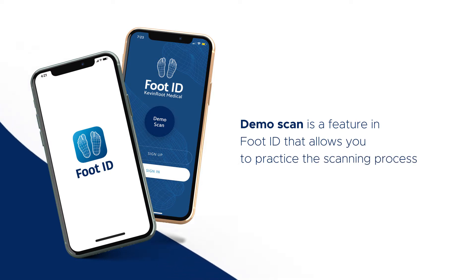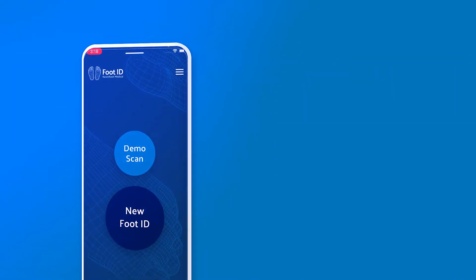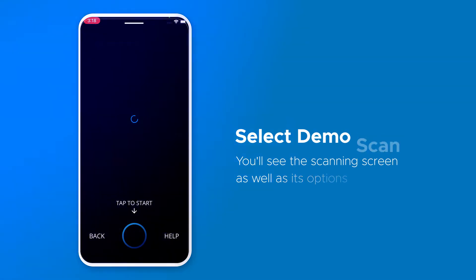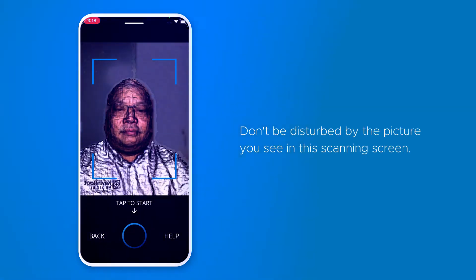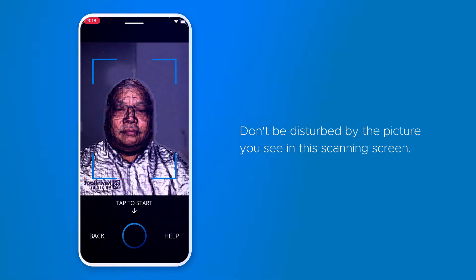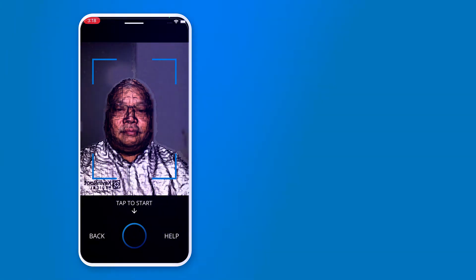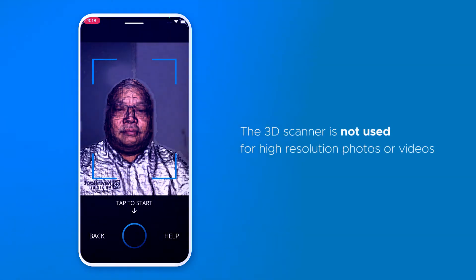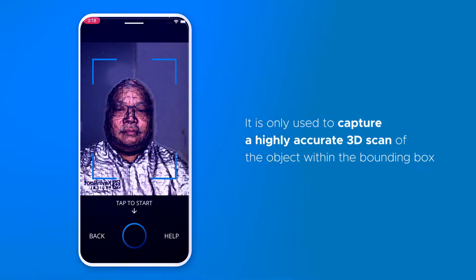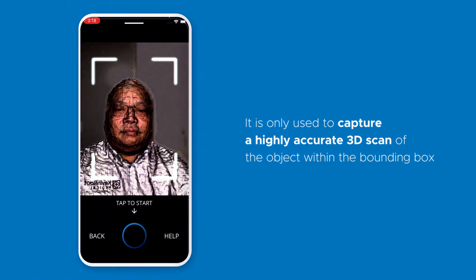Demo scan is a feature in FootID that allows you to practice the scanning process. Once you select demo scan, you'll see the scanning screen as well as its options. Don't be disturbed by the picture you see in the scanning screen, as FootID utilizes the onboard 3D scanner of your iPhone or iPad to scan objects, as opposed to taking a photo or a video with a device camera. The 3D scanner is not used for high resolution photos or videos — it is only used to capture a highly accurate 3D scan of the object within the bounding box, indicated by the 4 blue corners showing on the screen.